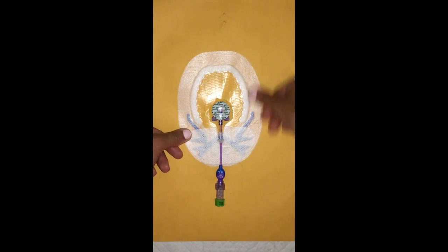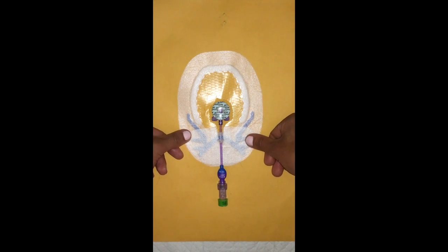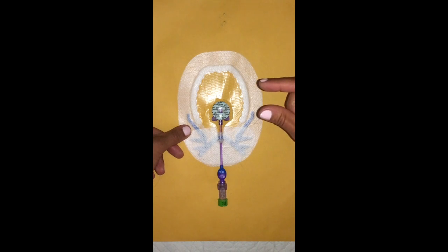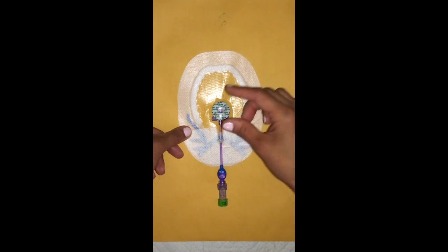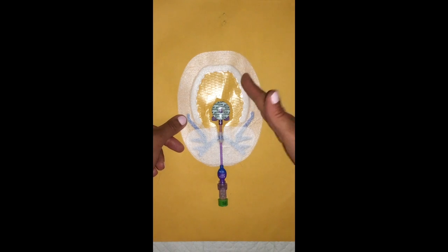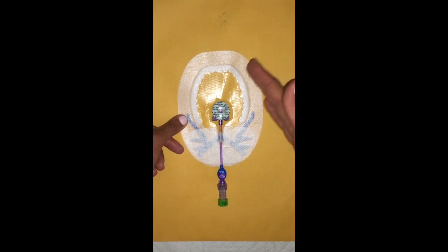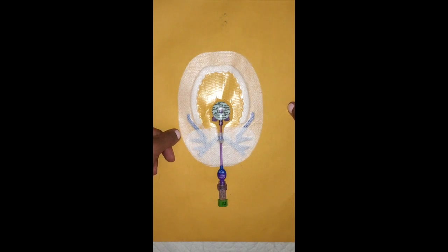Again, the purpose of priming the line is so that when you connect the medication, the patient almost immediately begins to get the medication. If not, these medications run at very small volumes, so it can be a long period of time before actually any of the medication hits their bloodstream. This is particularly important if they've already been on the infusion and you're just switching access or sites, because if you do not prime the line, it's almost as if you've abruptly stopped the medication, and that can result in serious side effects and even death. So it's important to prime the line.